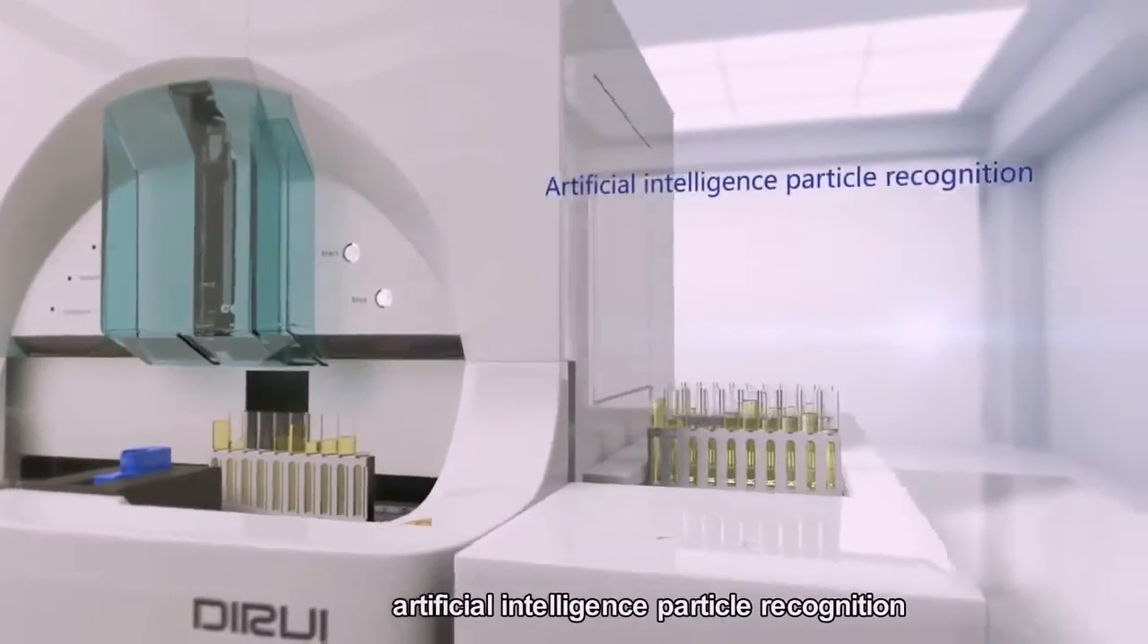A two-in-one design. The FUS-2000 Urinalysis Hybrid is an advanced urinalysis hybrid utilizing flat-flow cytometry imaging technology with fully automated sampling, artificial intelligence particle recognition, integrated test result reporting, and a space-saving design.